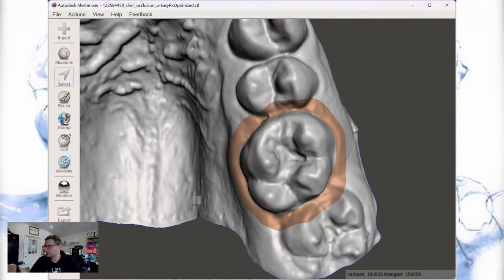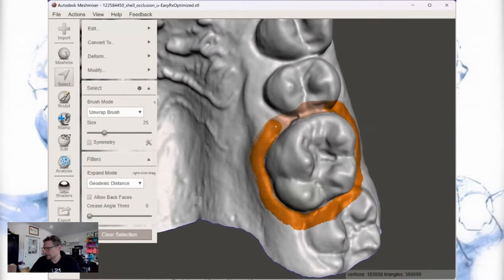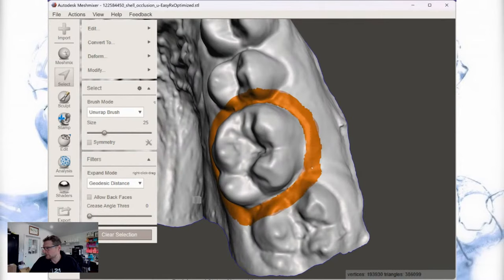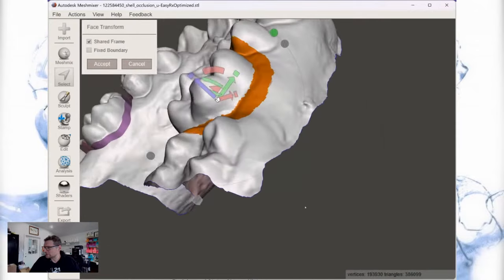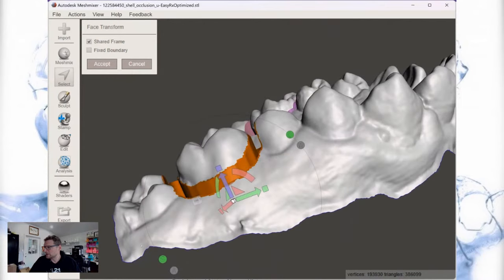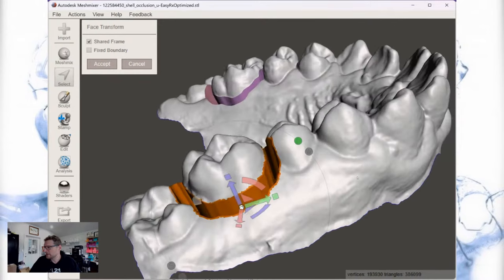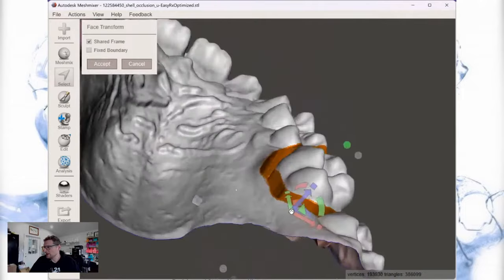After clearing the selection and re-highlighting correctly, I hit B and Enter, then T for Transform. I click S for Scale, grab the blue arrow, and go down negative 2.5 then negative 5 — that's 5 millimeters down. Then I unclick Scale, click and hold the white box, and taper it in a little bit. I like having a slight ledge that tells me where I can take it off with a bur or a knife when it's time to fit the bands.